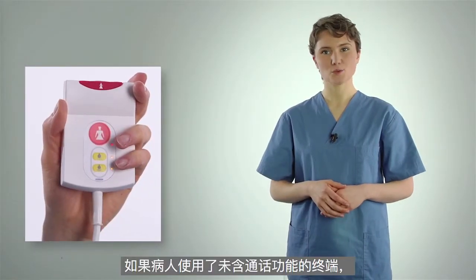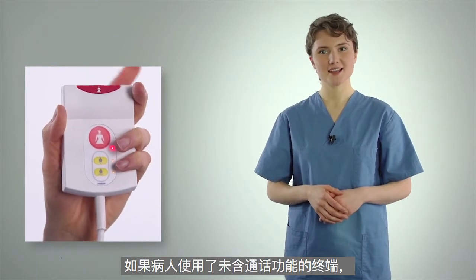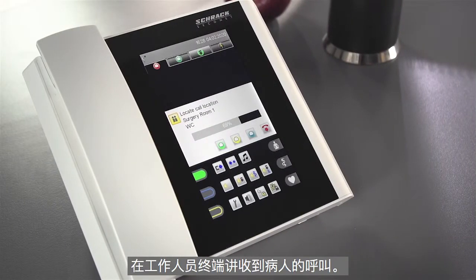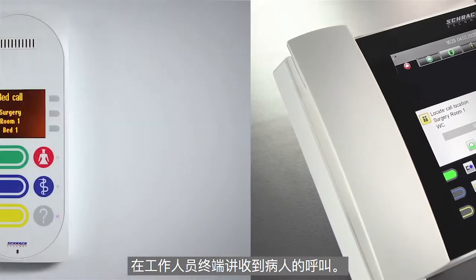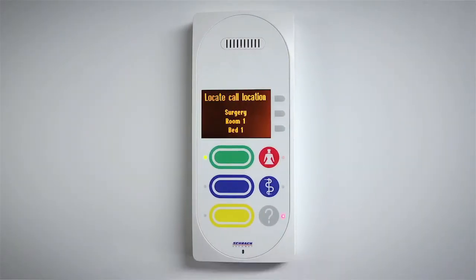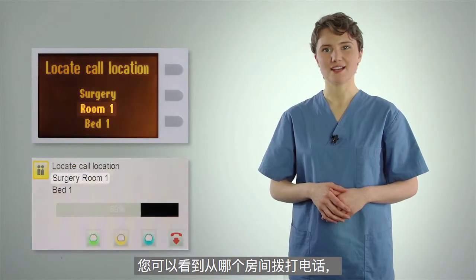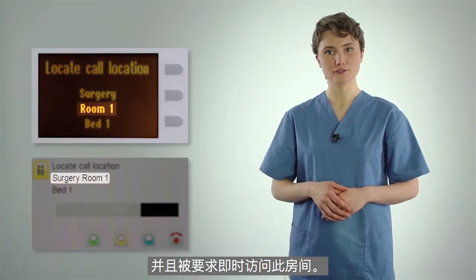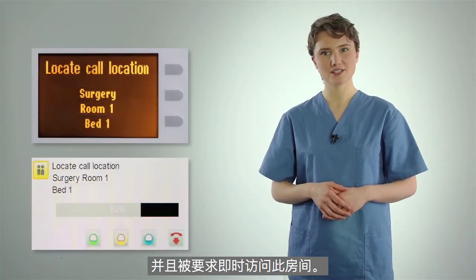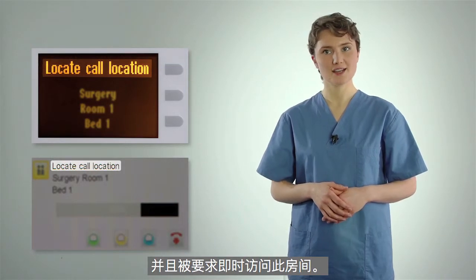If devices without a speech facility are in use at your workplace, calls will be received on the staff terminal or communications terminal. You can see from which room the call was made and you'll be requested to proceed to this room because no voice connection can be established.